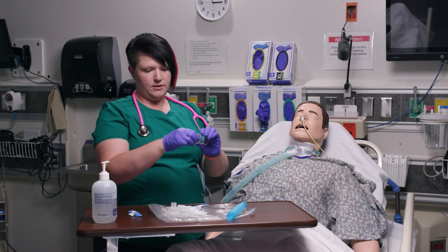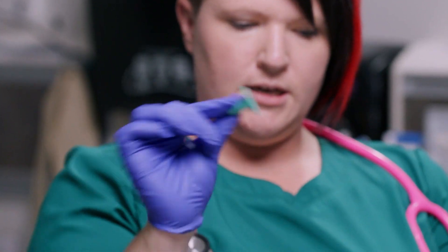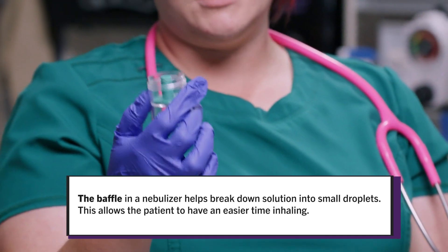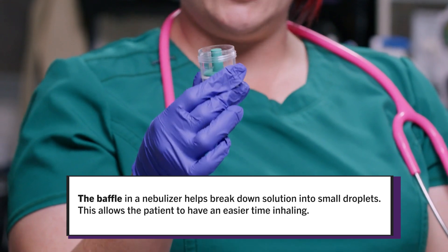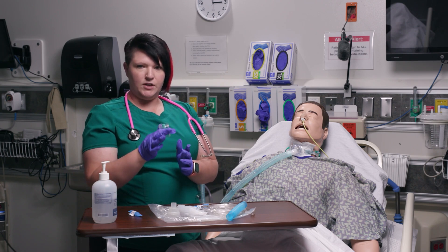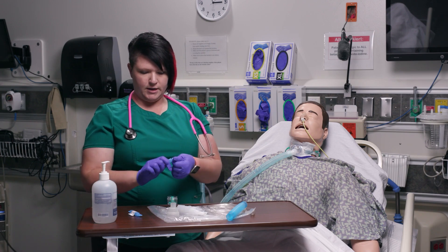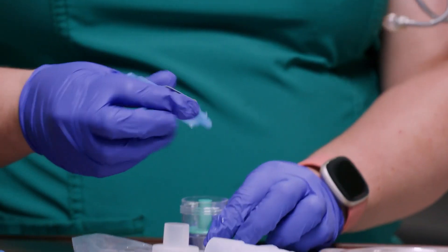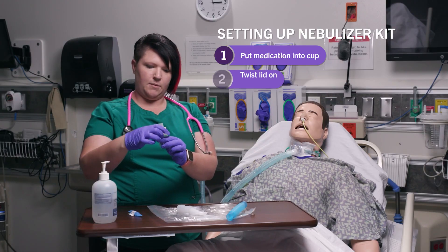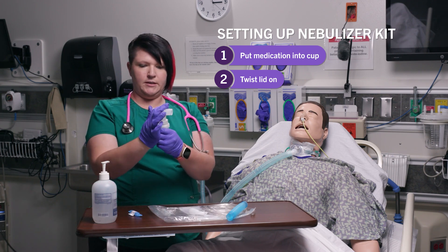First, there is this baffle — it's the green portion — and I need to make sure it is in my container. Not all nebulizers look the same, but this is the most common type you will see. So I've got the baffle in there. I'm going to open up my medication and squirt it in there, then twist the cap on.